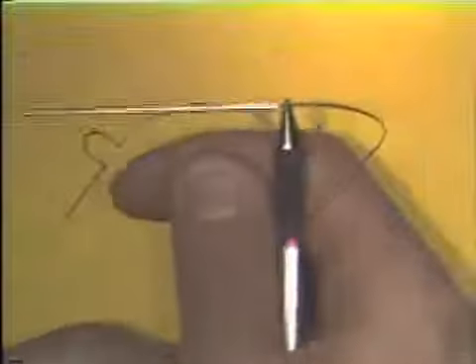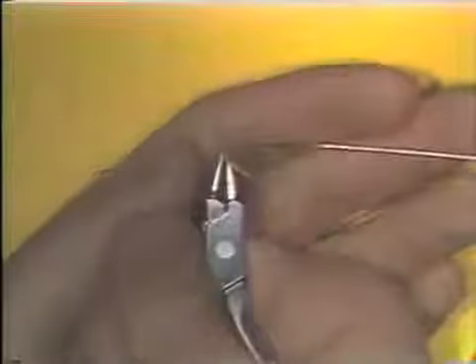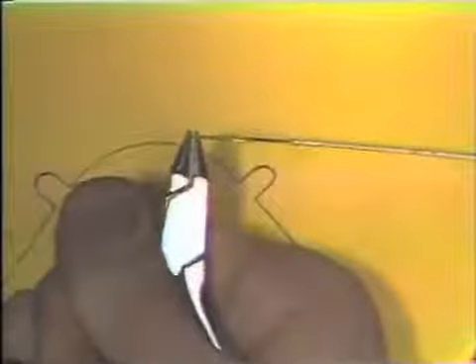The wire is oriented at 90 degrees to the long axis of the beaks of the plier, and the wire is kept directly perpendicular to the flat beak of the plier, if possible, to control the plane and space. When you have the wire properly oriented, the bend is made 1/3 of the way.